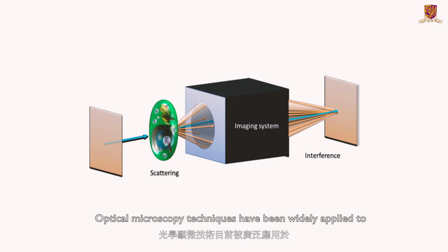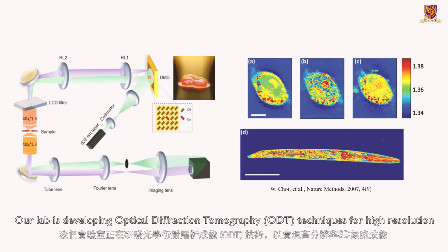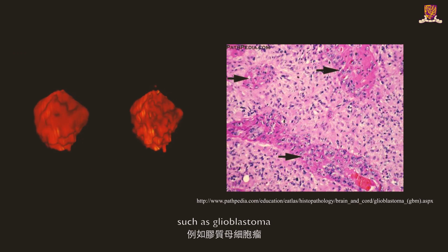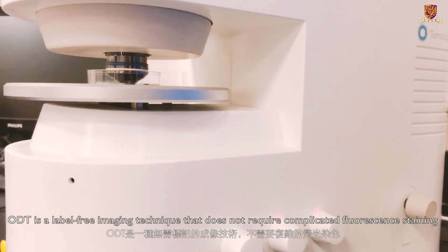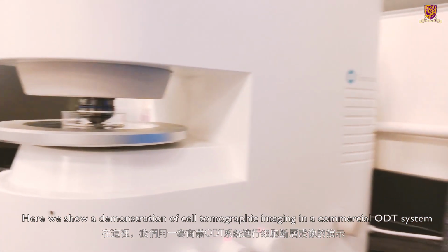Optical microscopy techniques have been widely applied to imaging biological structures and disease diagnosis. Our lab is developing optical diffraction tomography techniques for high-resolution 3D cell imaging that can be potentially used by pathologists for cancer diagnosis, such as glioblastoma. ODT is a label-free imaging technique that does not require complicated fluorescence staining. Here we show a demonstration of cell tomography imaging in a commercial ODT system.